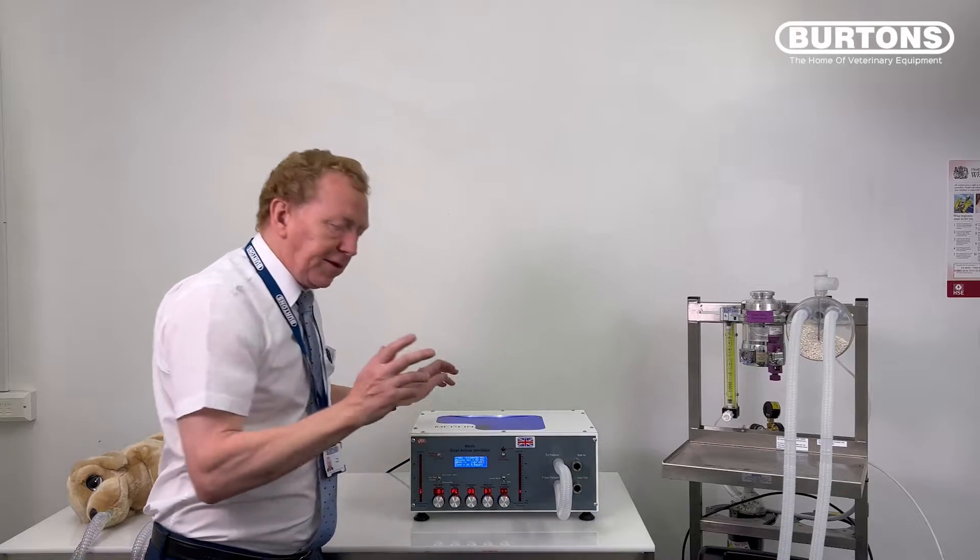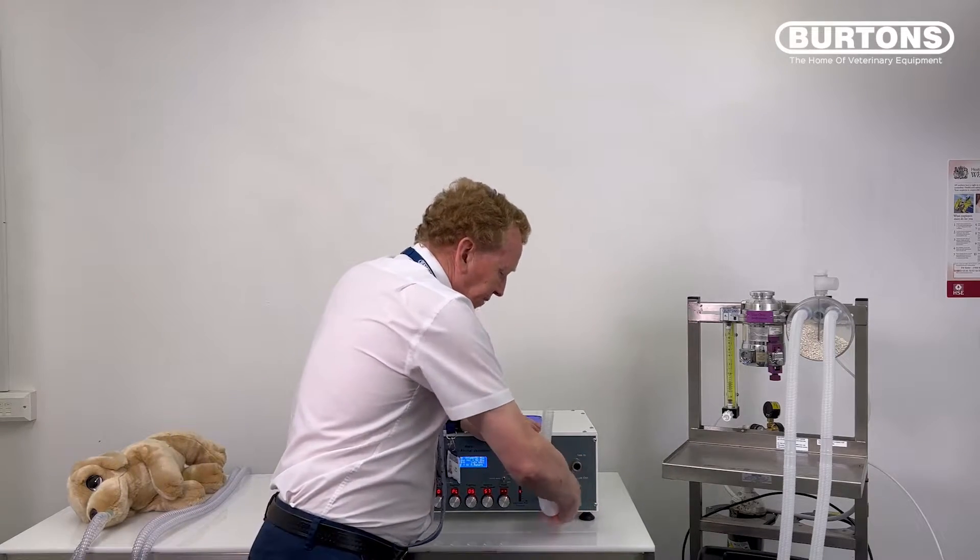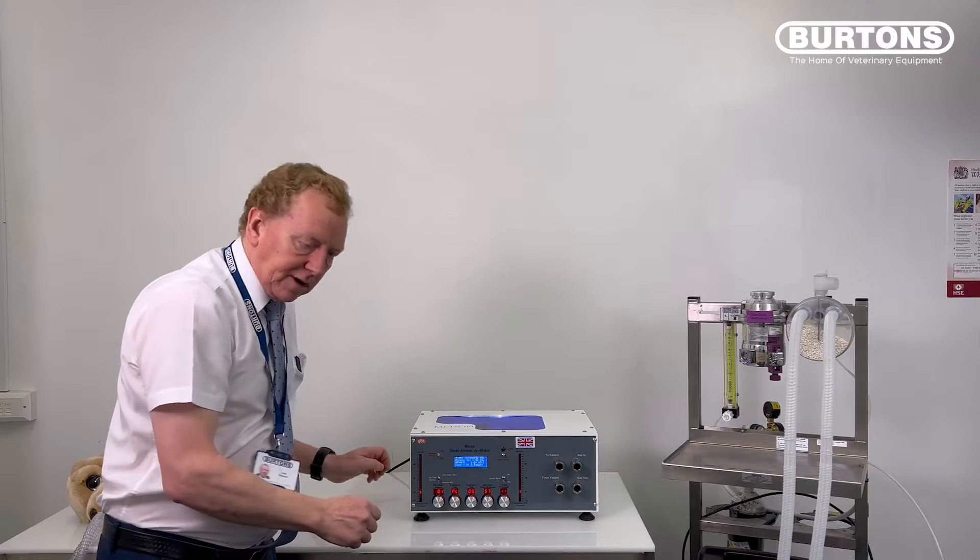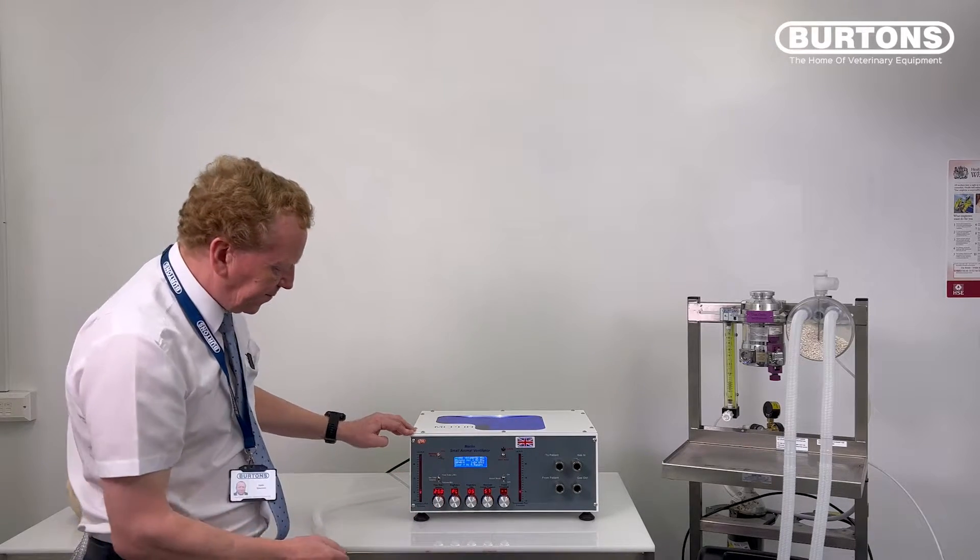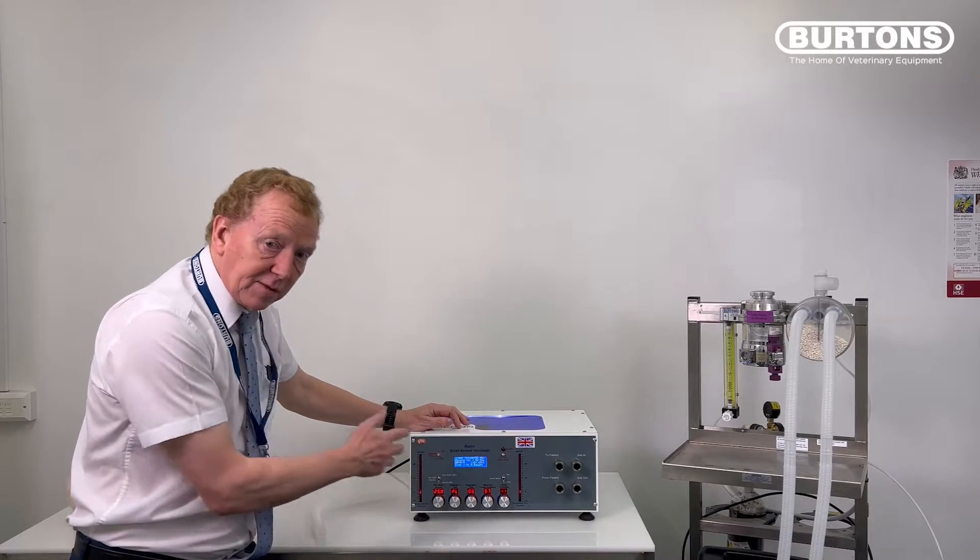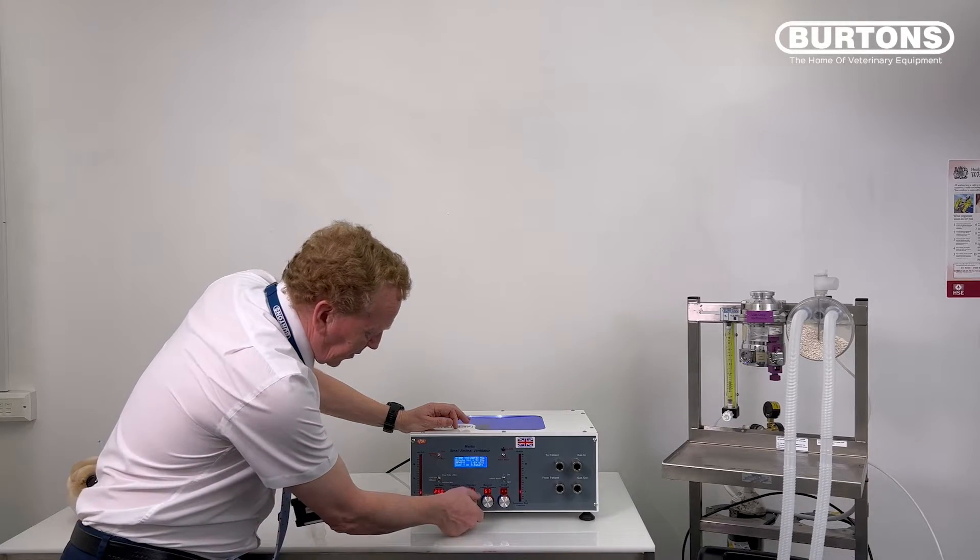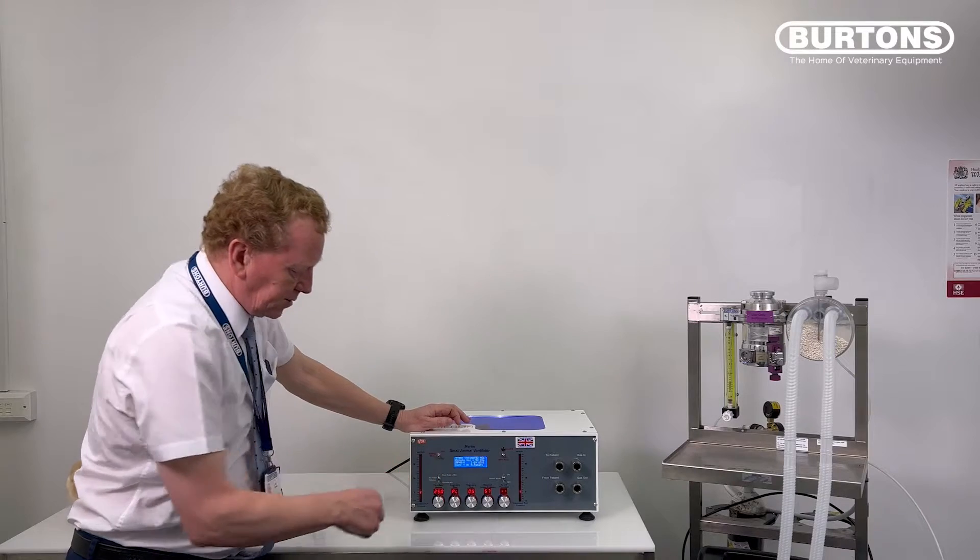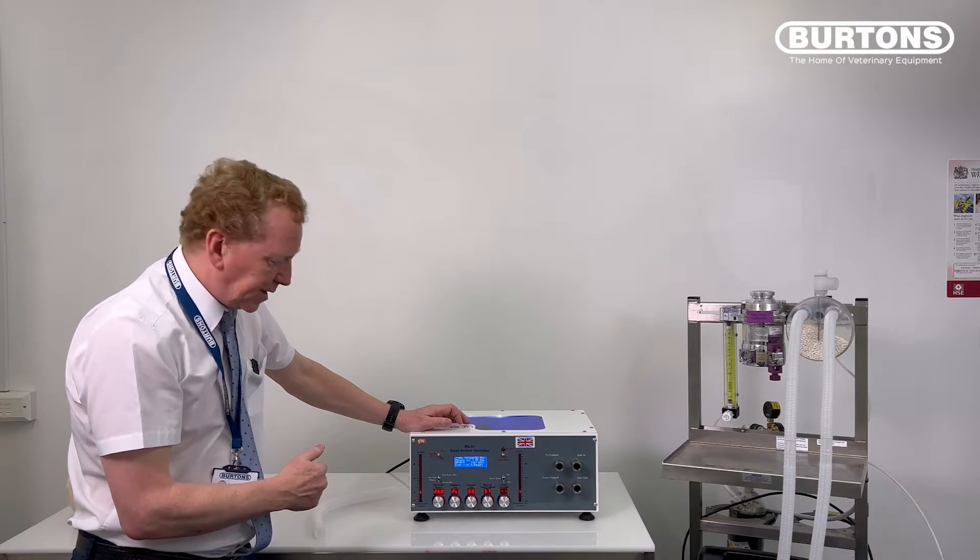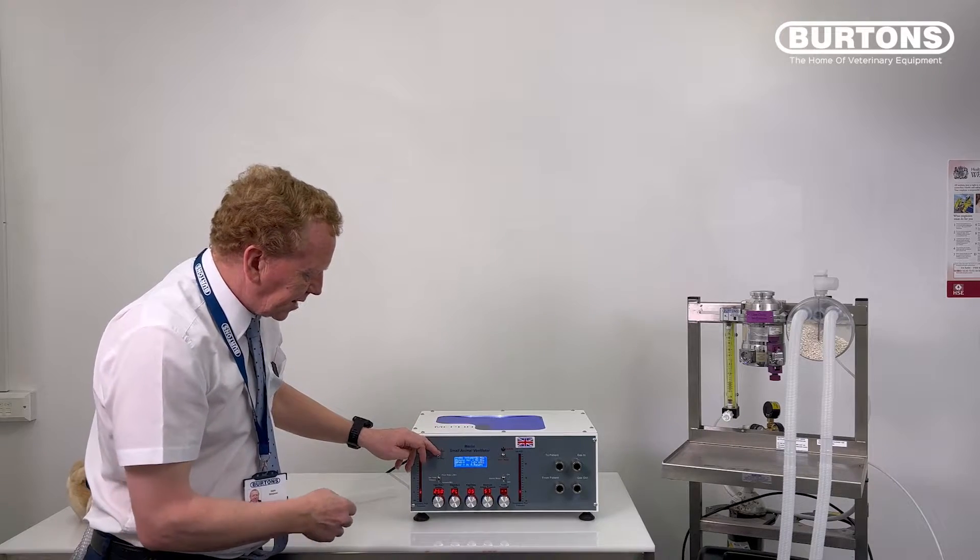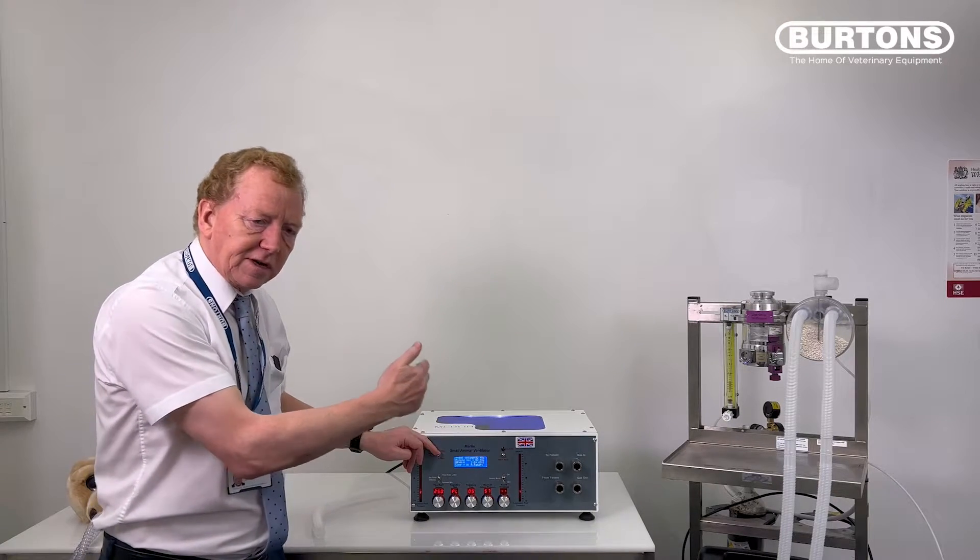Right, so we'll stop that. The other thing I like to do first thing is to leave it in pressure cycling mode, now put it at full rate 25 liters a minute, or on some of the modified machines that'll be 40 liters a minute. Put the expiratory time, just turn it right down, it'll go to something like a half. Because of a pressure cycle, it'll adjust as soon as it gets going. We're just going to run it at full speed and at the end of the stroke it's going to beep.